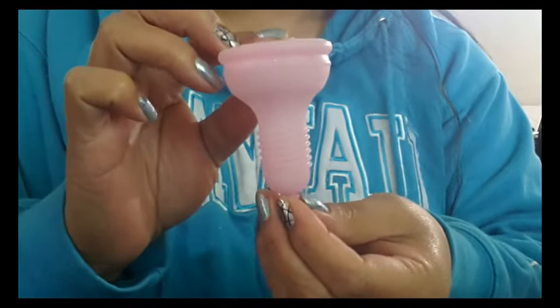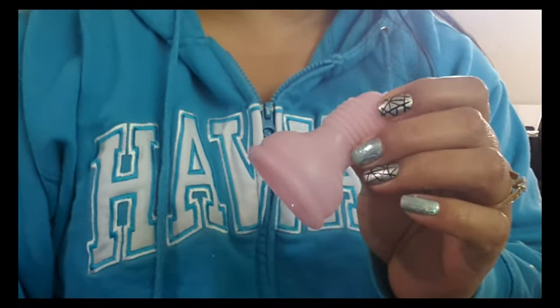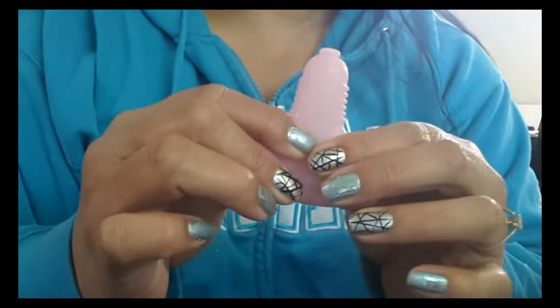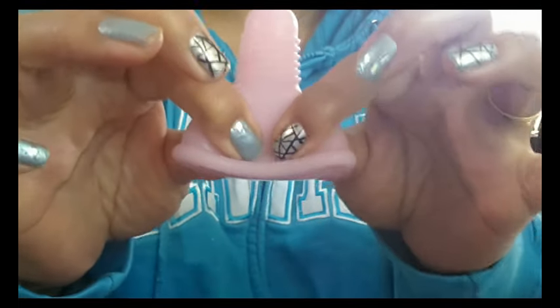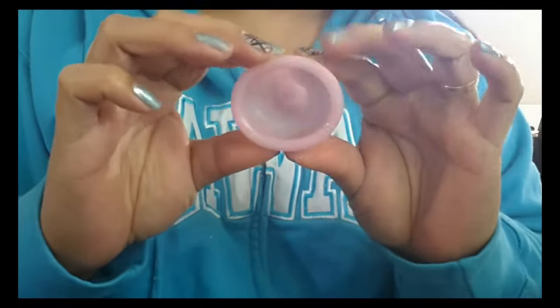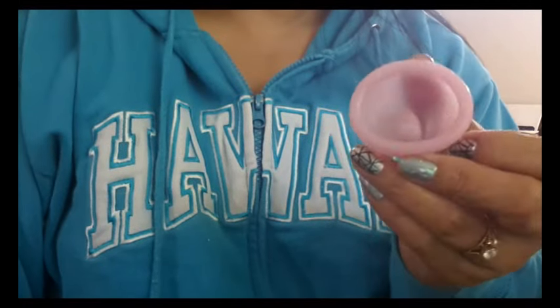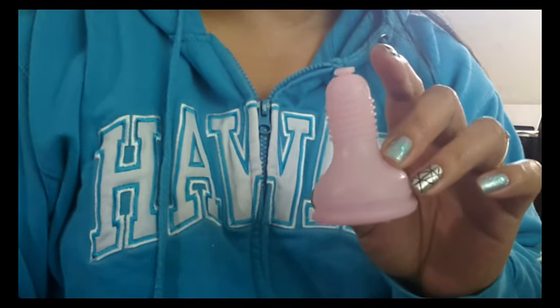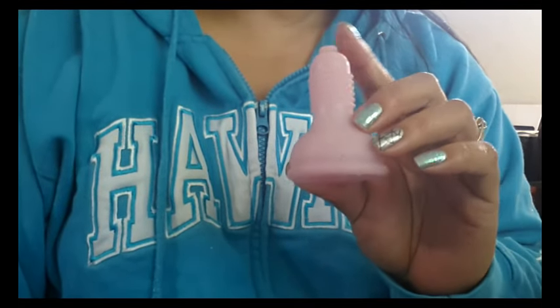The Amy Cup Original Kit only comes in this opaque pink color. The silicone-TPE mix has a grippy feel to it — it's a bit frosted, and if I pinch down on it and try to pull my fingers apart, my fingers don't slide right off easily. It's said that this cup is supposed to be a 60 Shore, and I do have a cup that was tested at 60 Shore, but they feel very different. This is a unique designed cup — I've never seen another cup like this. It is the first and only cup that I know of that has an applicator.